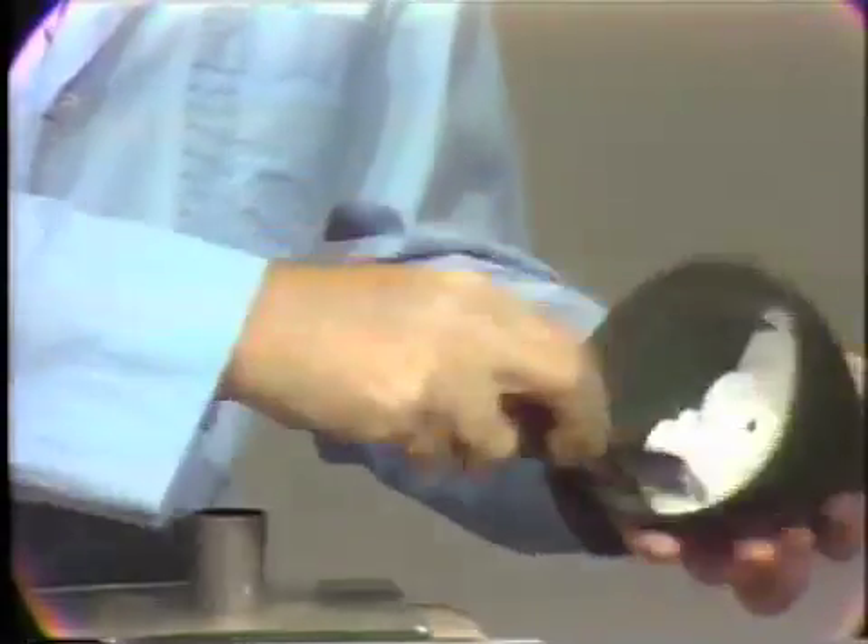We will simply first just try to wet the powder with water so that the powder will not fly around the room. And then as the material is completely wetted, we will continue our mixing. In hand mixing, we'll mix at about three revolutions per second and we'll mix for the full minute. This should give us a good, creamy, smooth consistency mix of model plaster.